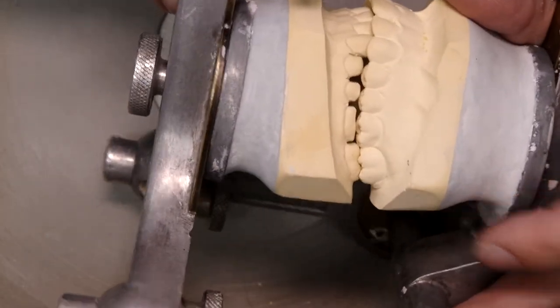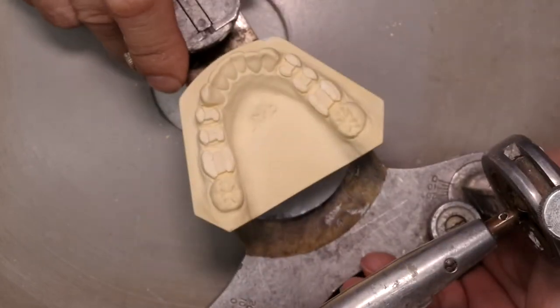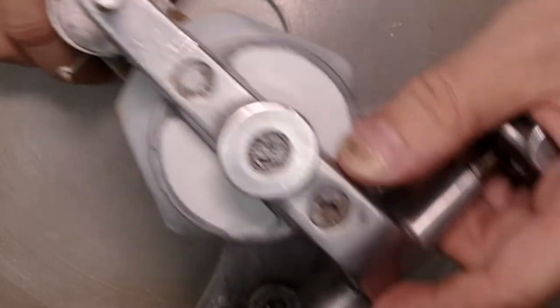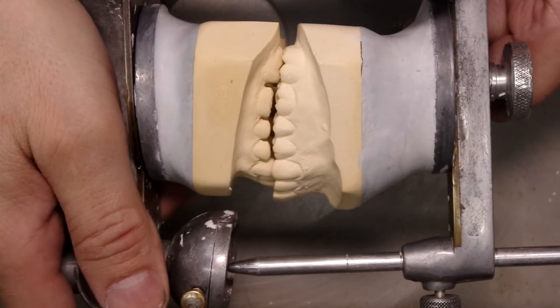After you're done, just make sure you bring it up and I'll check them out for you, to see if we took away enough of the occlusal surface. That's one side, and that's the other side.